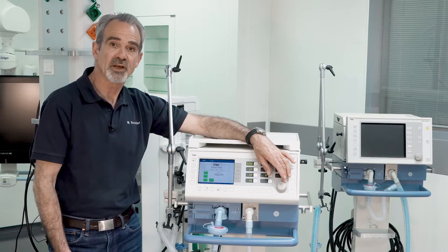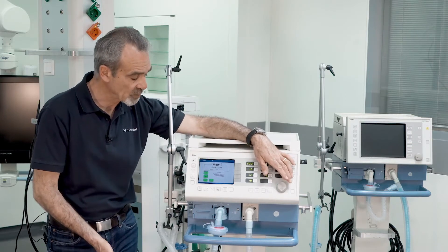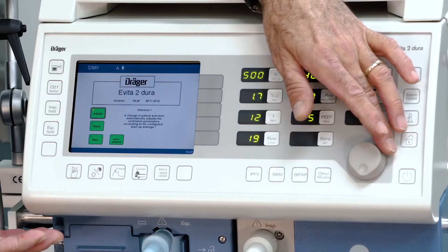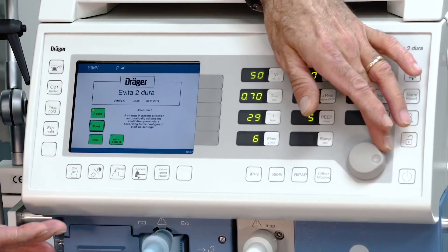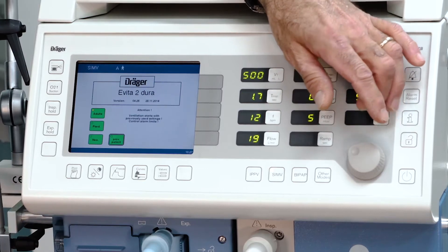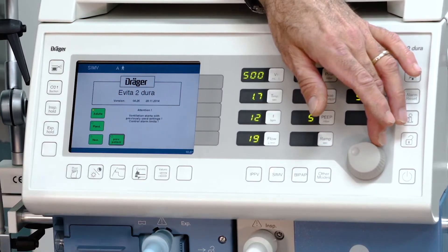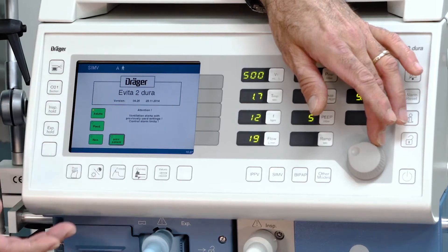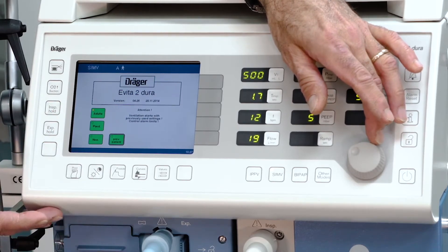On the start screen you have two possibilities to begin with the ventilation. You can select the default settings according to the patient groups, or you can continue the ventilation of a patient by using the button 'previous patient', for instance after a transport.